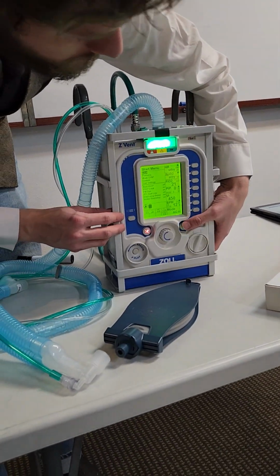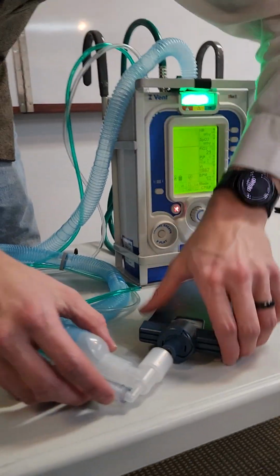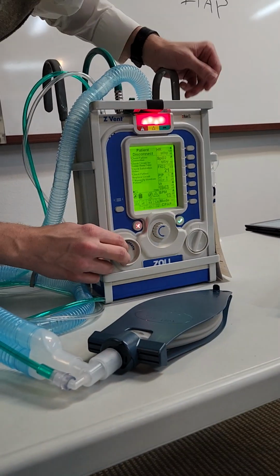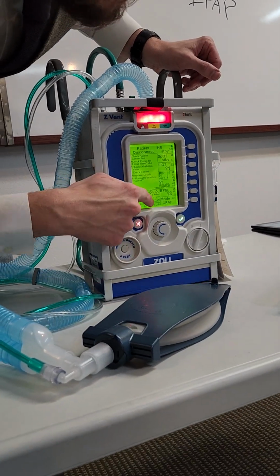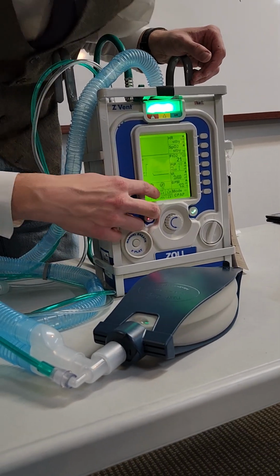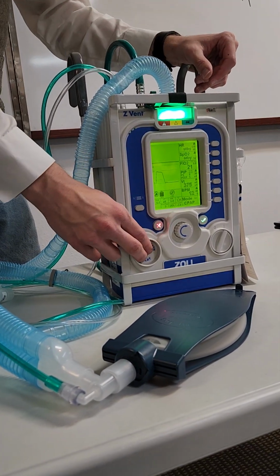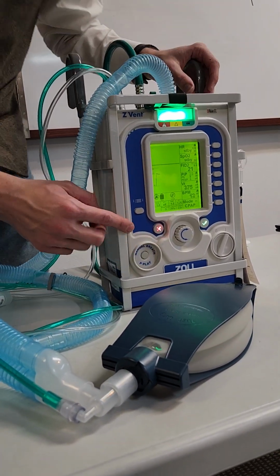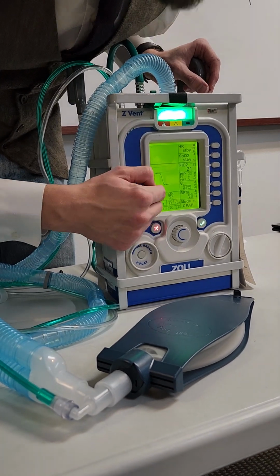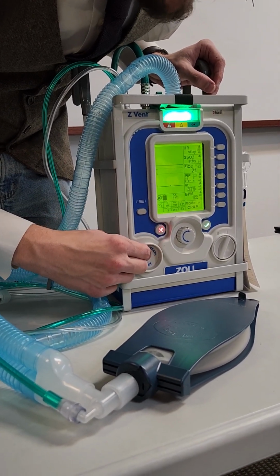To get to this setting, turn it on. So we're in mask CPAP. And it's found right down here. That little tiny, it says trigger. It's just trigger on here. Is that screen always there, or is that the screen that pops up because you put it into CPAP mode? I put it in the CPAP mode. Okay. So that's why it's here. So we see the trigger is -2.